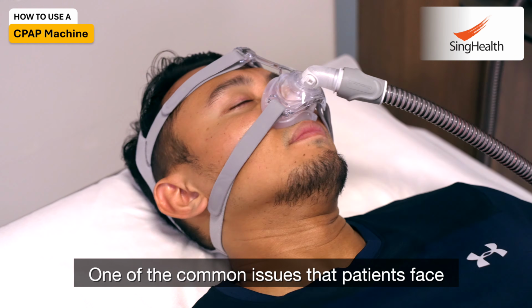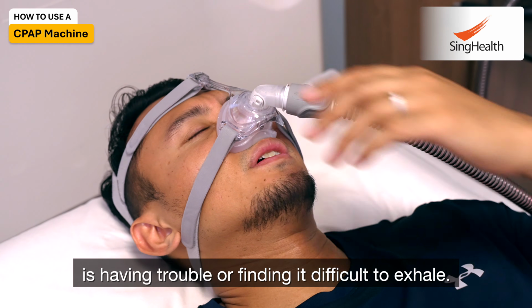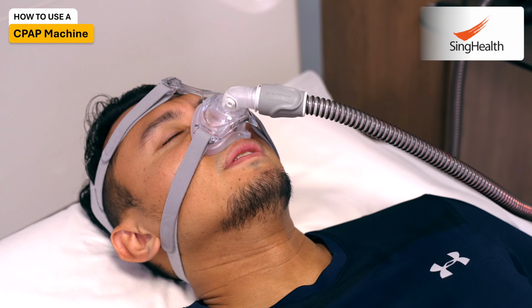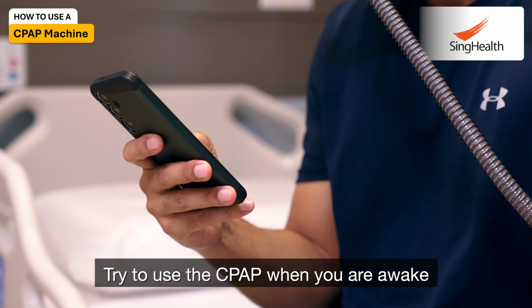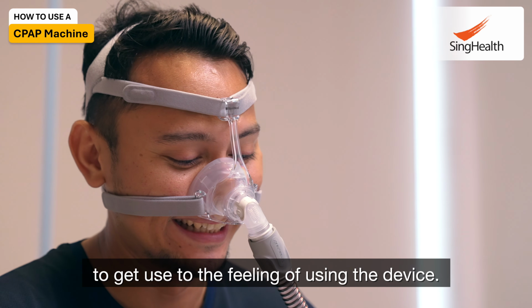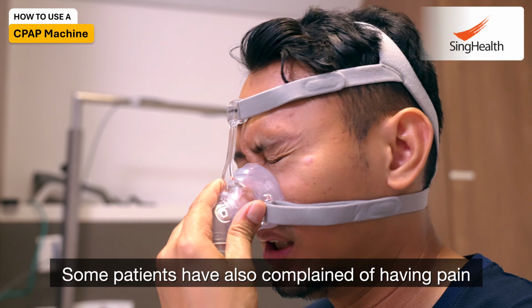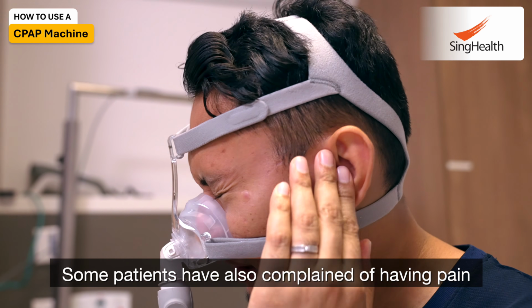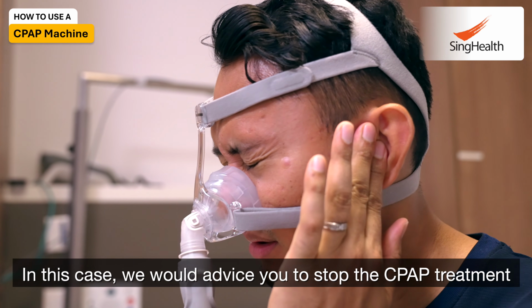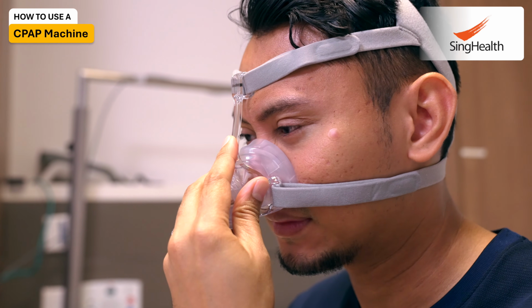One of the common issues that patients face is having trouble or finding it difficult to exhale. Try to use the CPAP when you are awake to get used to the feeling of using the device. Sometimes, you may also experience blocked nose. Some patients have also complained of having pain in the nose or ear. In this case, we would advise you to stop the CPAP treatment and consult a doctor first.